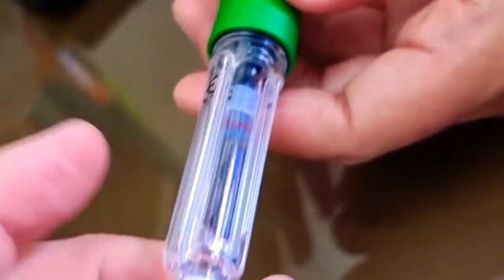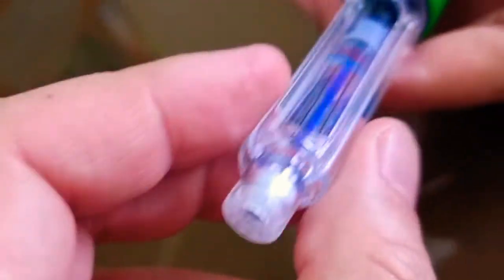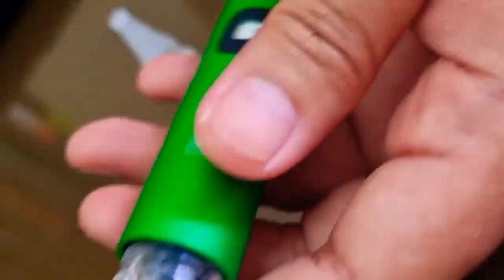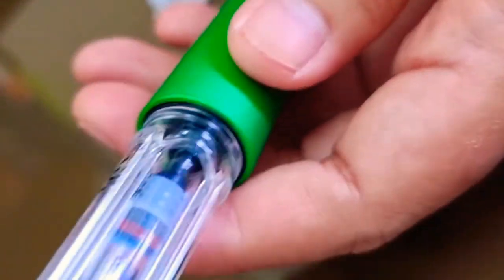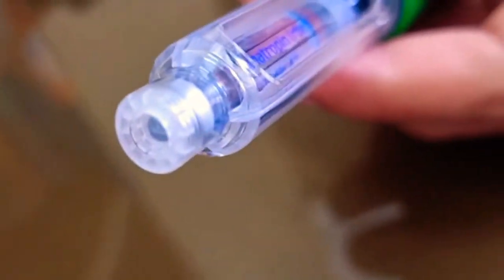So it's just really important at this point that the needle still isn't in. Otherwise, you're going to push all of that. Yes, that's correct. Don't put the needle first. We put the needle after we dial actually. So you got to get a plunger in.